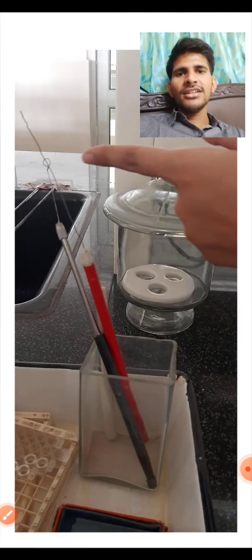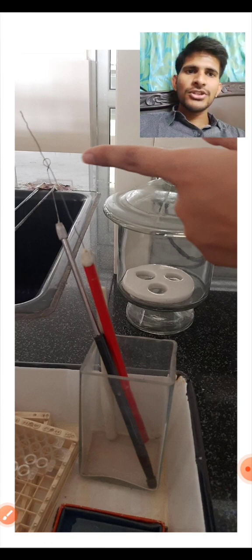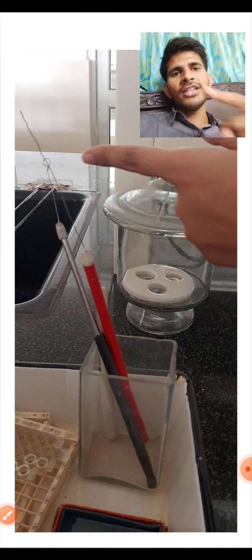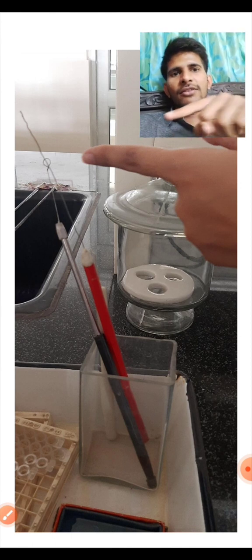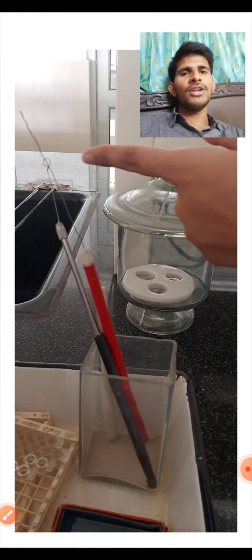You can see here, these are two types of wires. One is a bacteriological loop or inoculation loop. Another one is an inoculation wire. They will take bacteria like this, and they will use it for heat fixation, like smear preparation. It will be helpful, and it helps in picking up of the colonies. It is most important, and it took me very much time to know what it is.